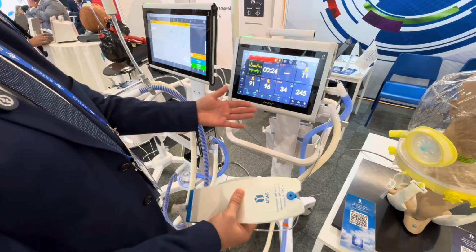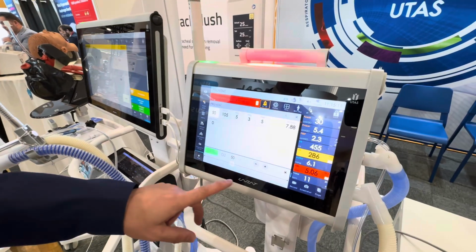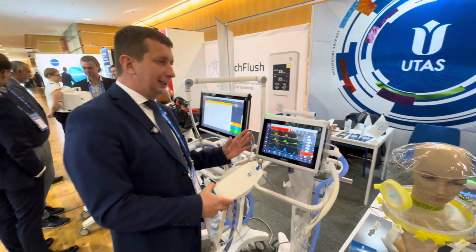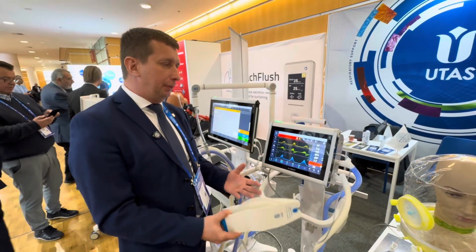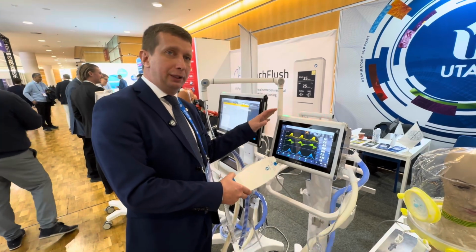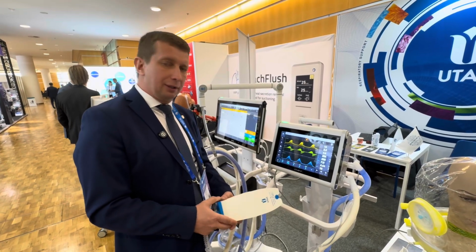As soon as our CPR is finished, we can switch back to the previous ventilation mode and proceed with the respiratory support for the patient. So the CPR mode is helpful to handle the critical situation for a patient, and only one clinician will be capable of providing the full range of cardiopulmonary resuscitation. The ventilator will cover the ventilation part, and the doctor will cover the chest compressions in order to establish spontaneous circulation.